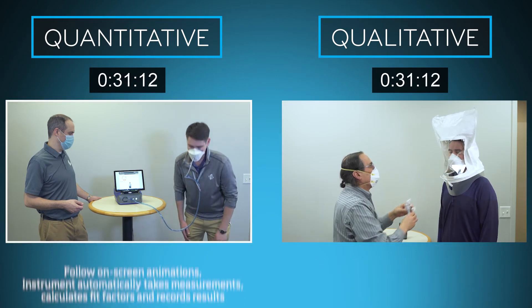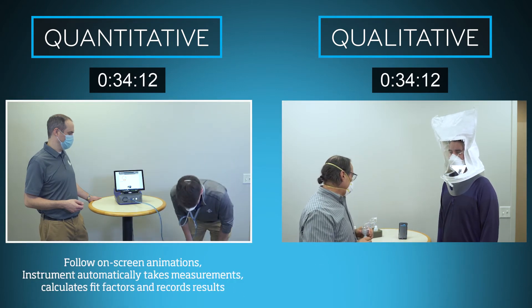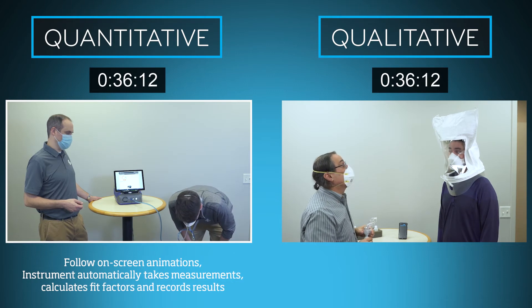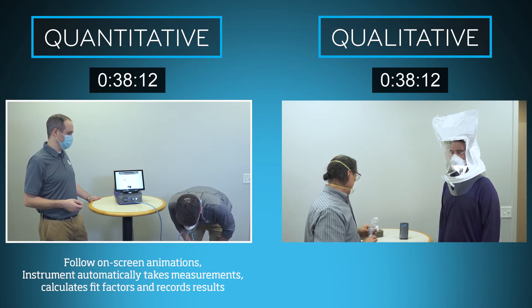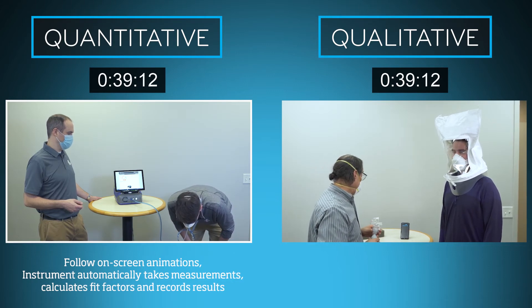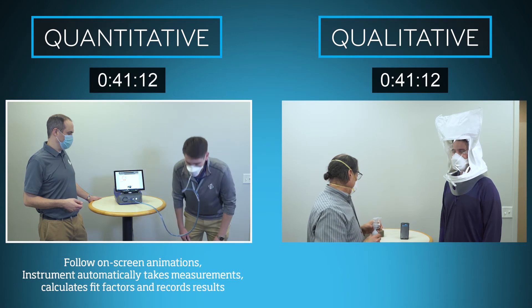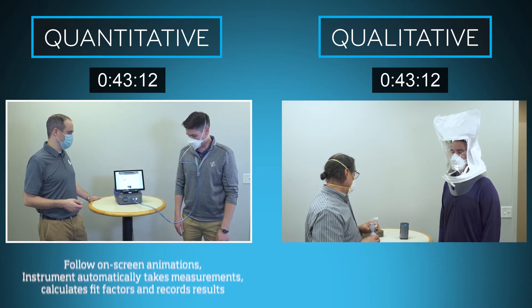For the quantitative test, the respirator wearer simply follows the on-screen animations to complete the exercise. The instrument automatically takes measurements, calculates a fit factor for each exercise, and records the results.